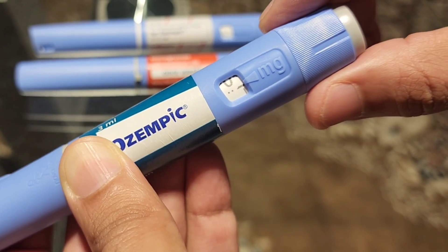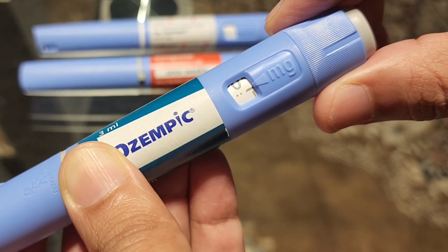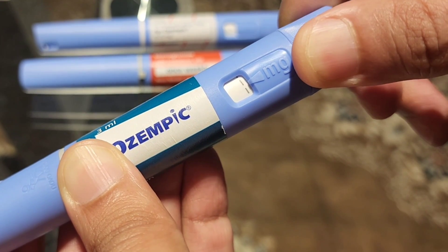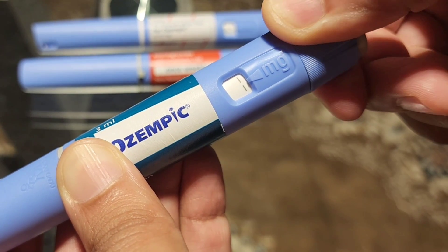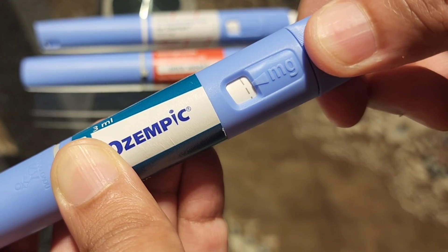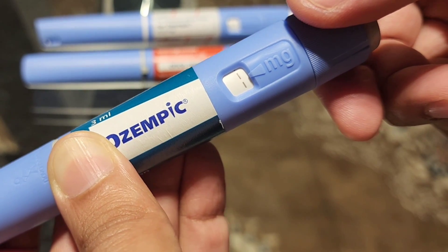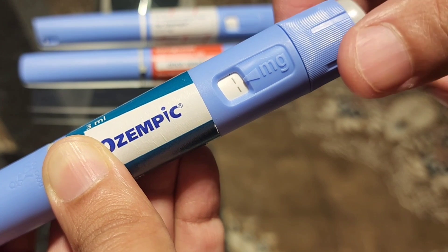I'm going to count each click and tell you where you will have the different dose strengths. 1, 2, 3, 4, 5, 6, 7, 8, 9, 10, 11, 12, 13, 14, 15, 16, 17, 18. Now if you administer this much amount you will get a 0.25 milligram dose.